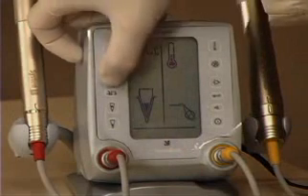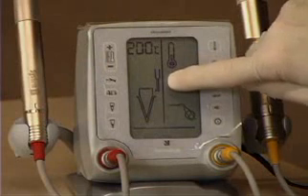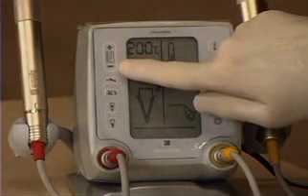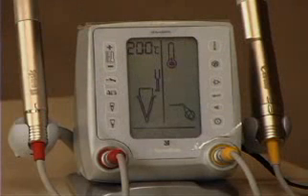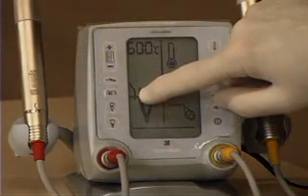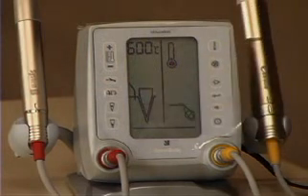The top button is for heat testing. The icon shows a heat tester on the side of the crown of the tooth. You can vary the temperatures with the temperature control button — read your manual and you'll see how to make your custom setting remain the next time you turn it on. The next button down is an electric heat cautery device, which will be available sometime in early 2006.